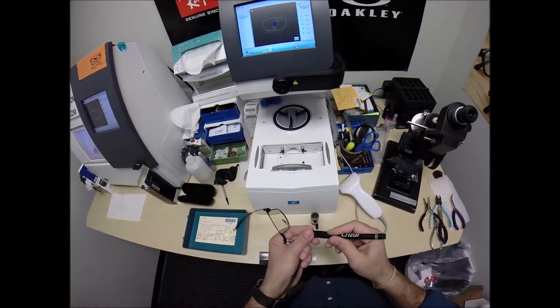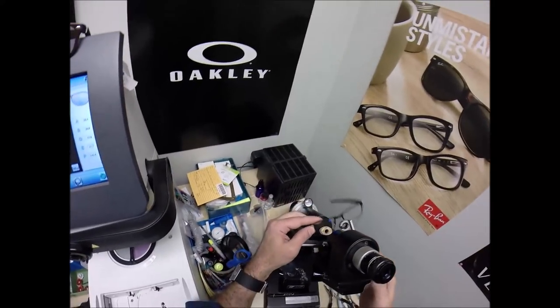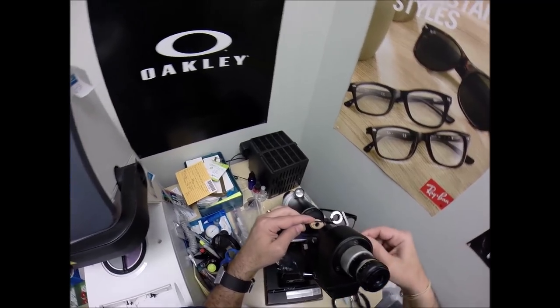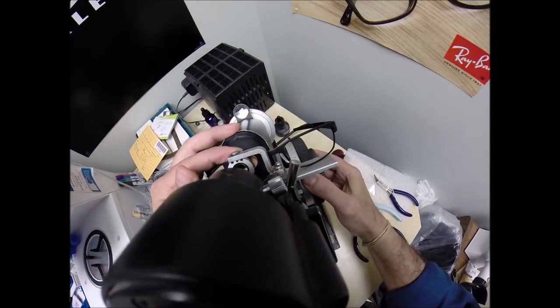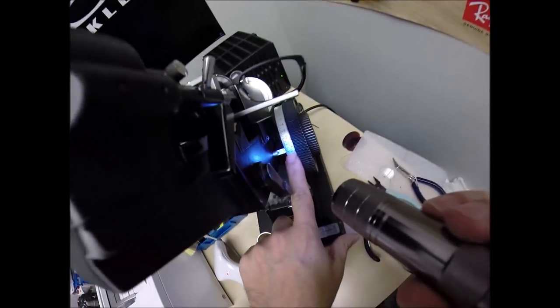Now all this talk, I'm almost about to rub the optical centers off or got washed off. So I'm going to dot that on there. I'm going to come down here to my lensometer. Spin the axis wheel to 80. Put it in above that dot. Close the clamp and read the power. And I am getting plus 25.